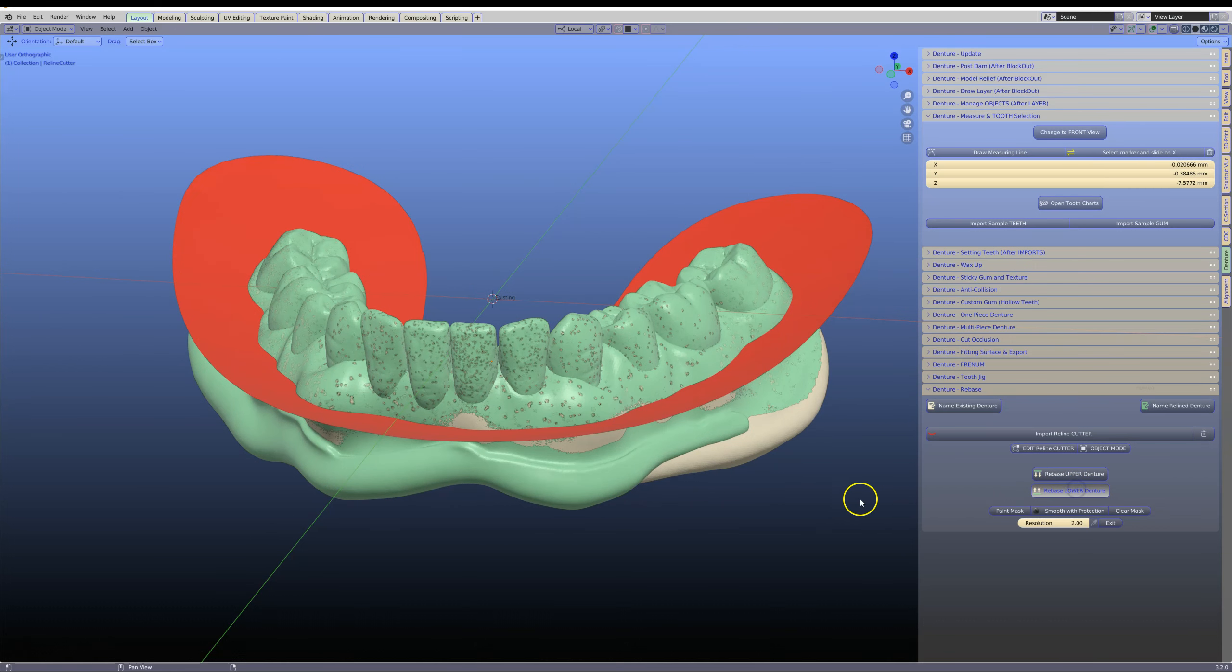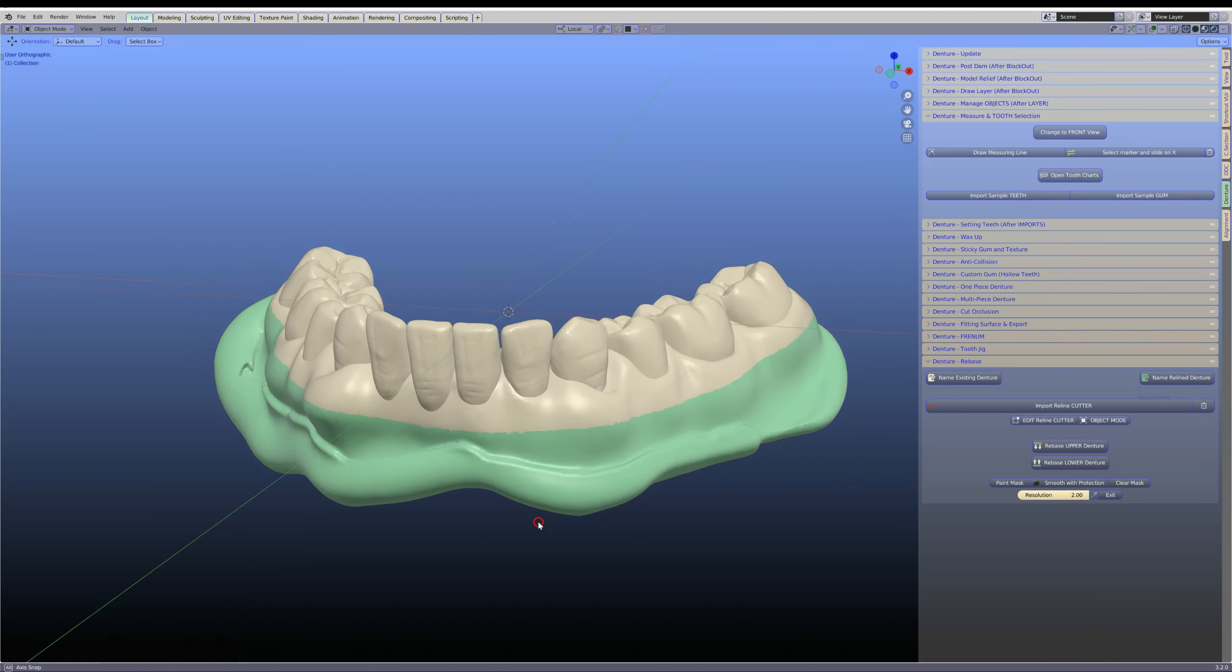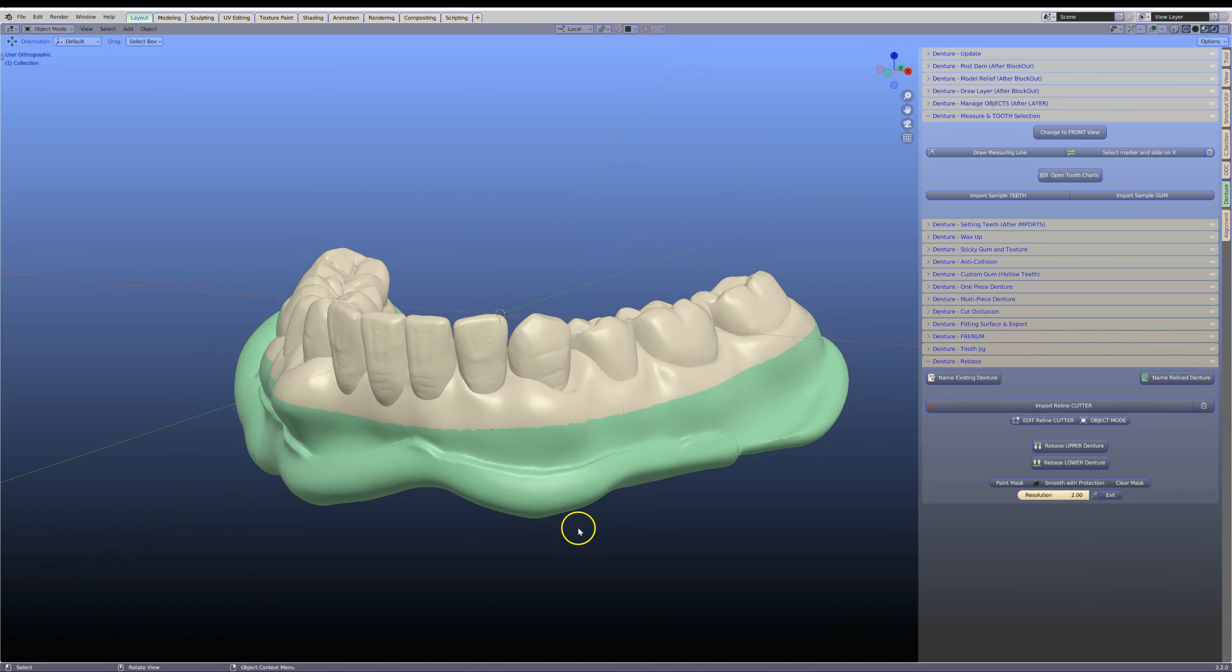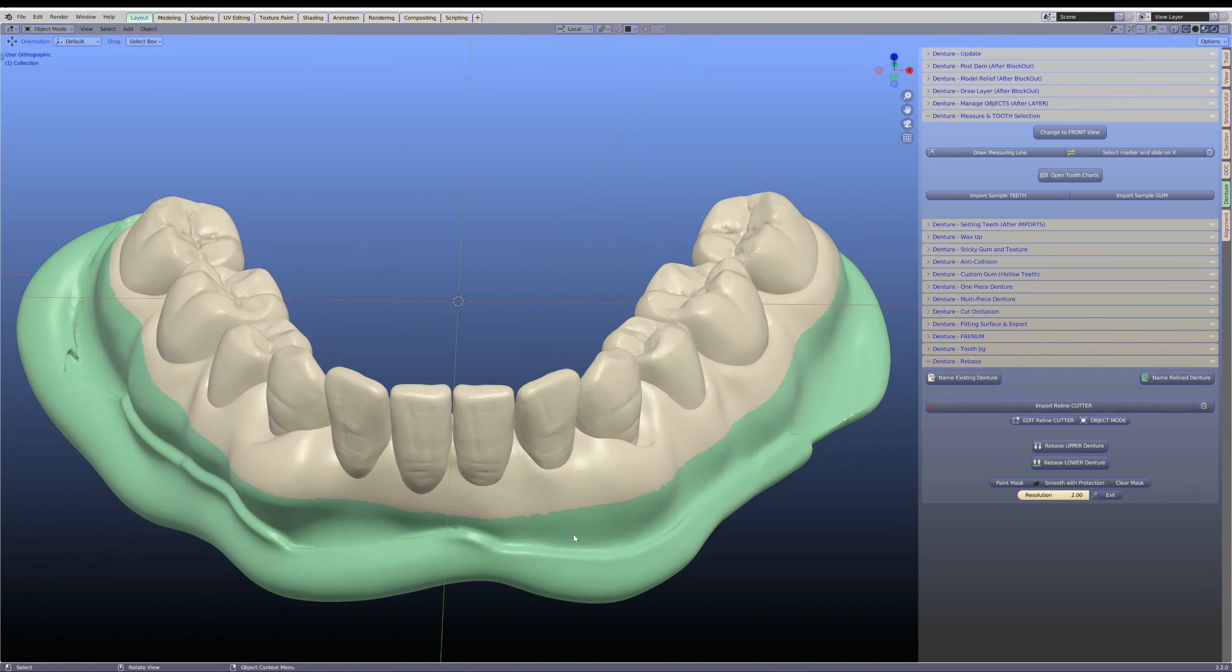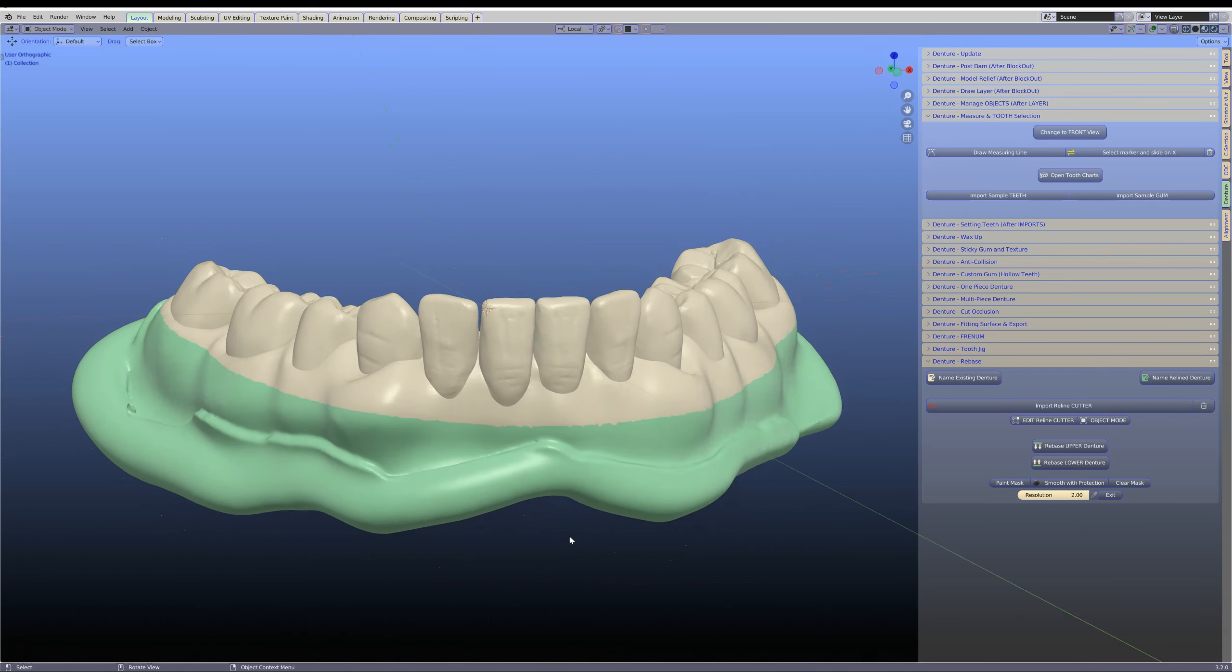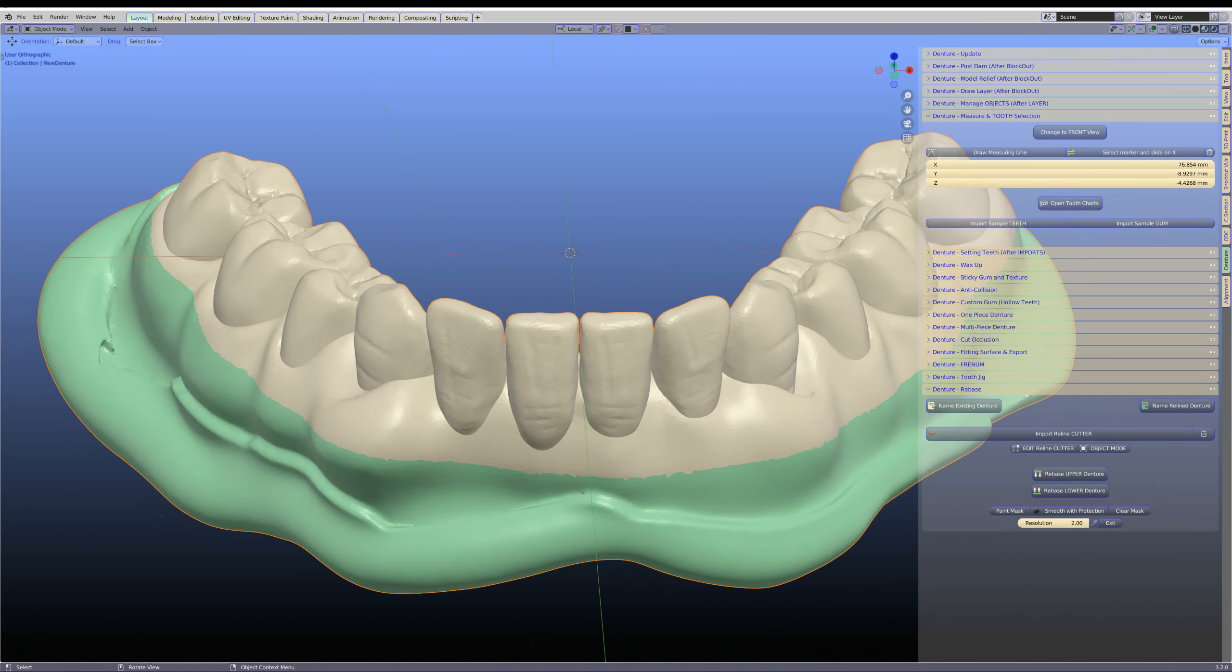Let us press this magic button to rebase the denture. This may take a little while to calculate, so please be patient. Notice how the yellow one has merged with the green one, and we have an almost perfect transition. The last thing we should do is smooth it down.